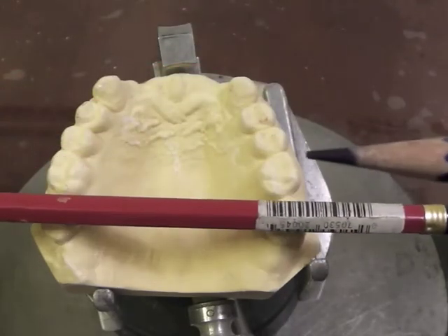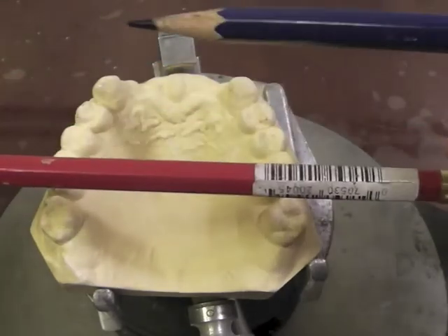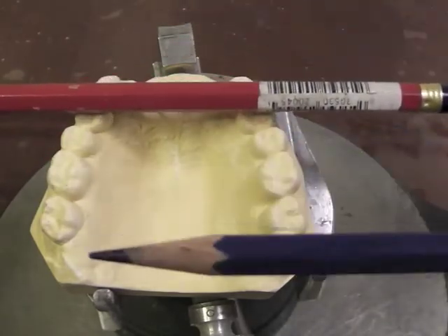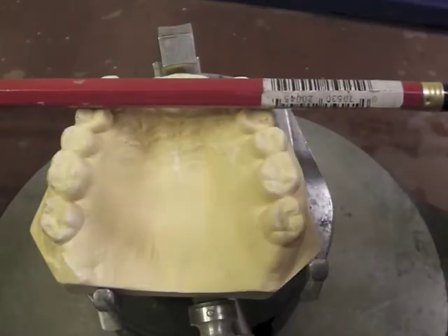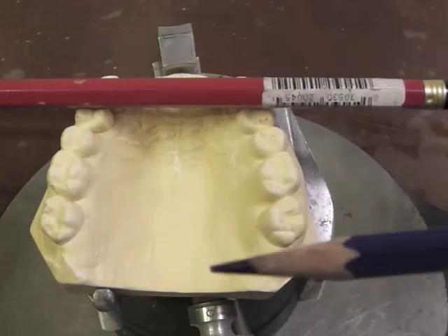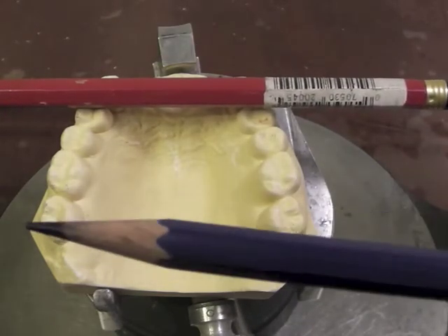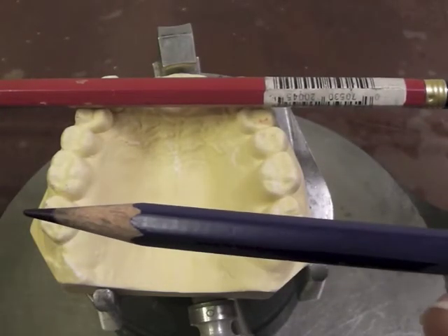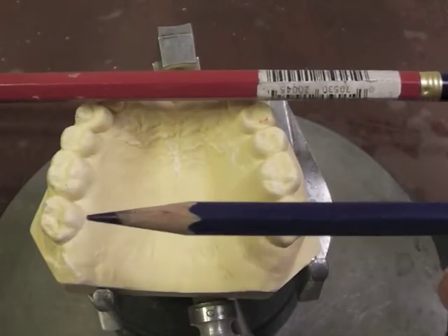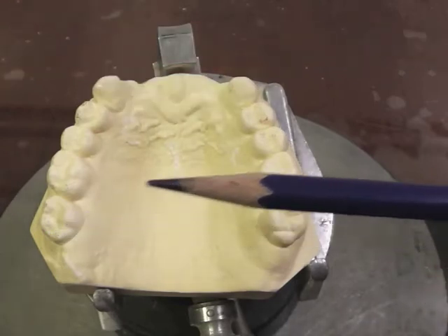When the patient bites down on something hard, the partial denture wants to flip up in this direction. So the best way to counteract that would be to place two direct retainers as far away from the fulcrum line as possible.